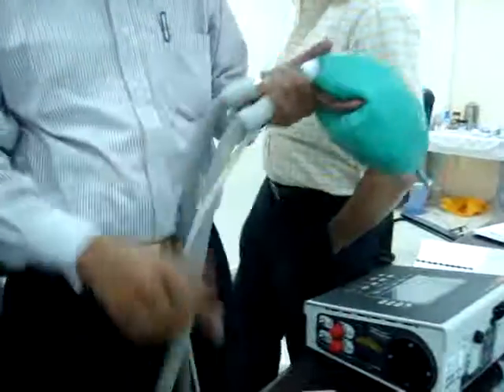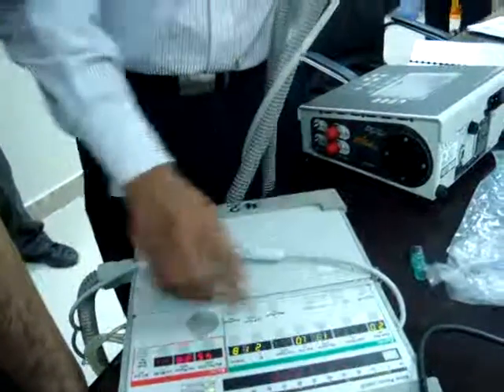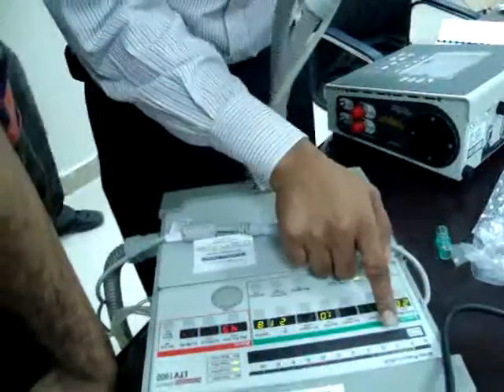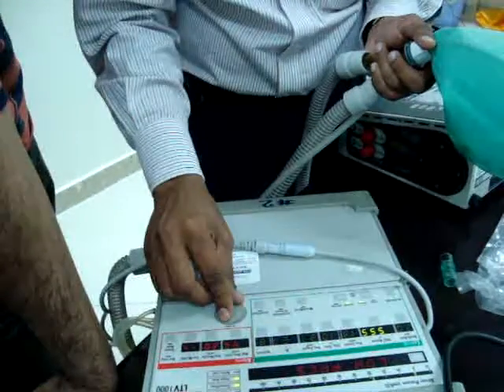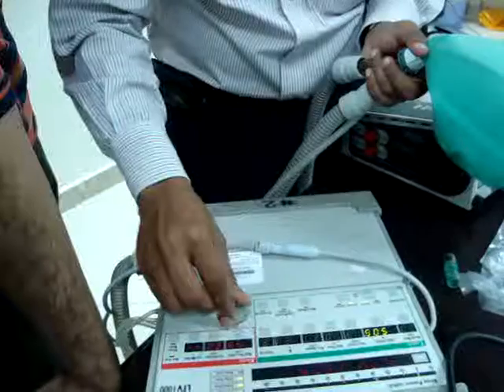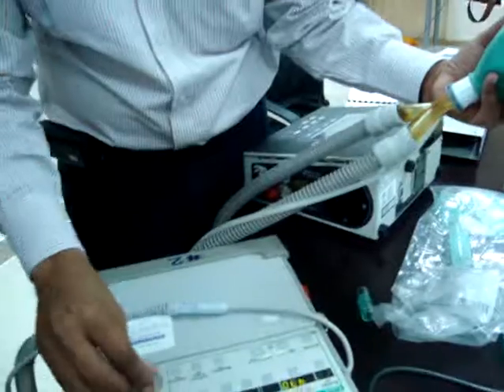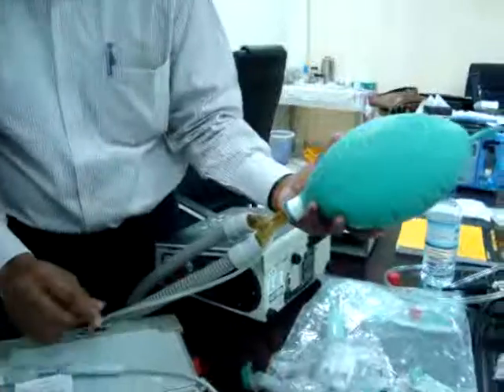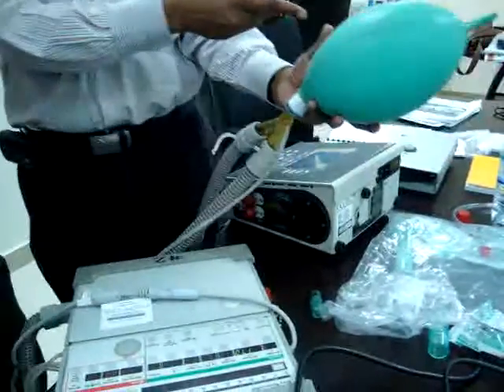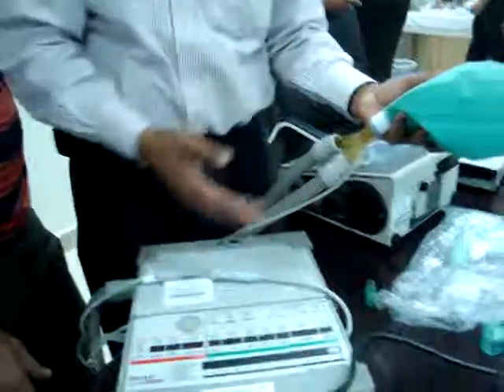Okay, next. What is set here is called the ventilator settings. These are the controls, this is the indicator, these are the alarms. So we have the scope to adjust the value. Now I can adjust. As I reduce it, can you see the lung is smaller? It is reducing. Oh, it will blast if you put 1500.